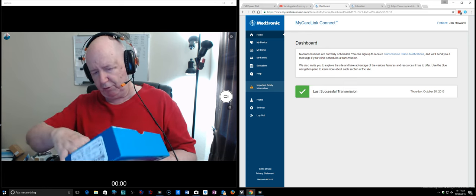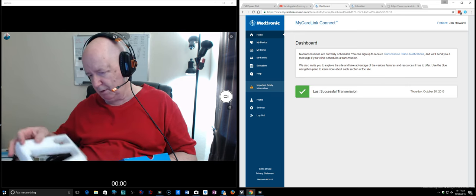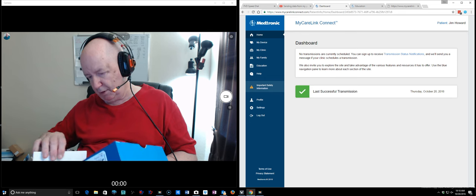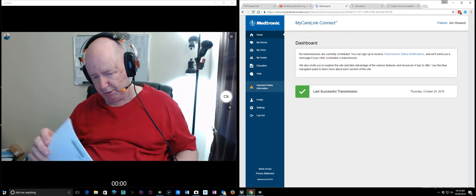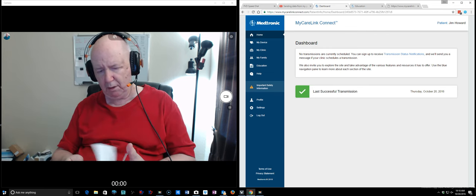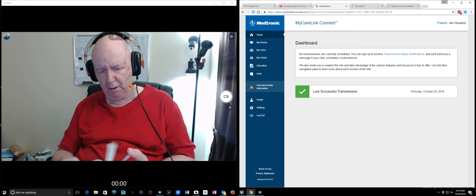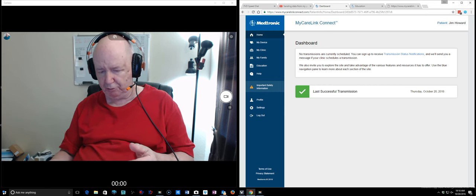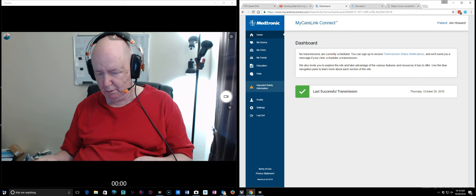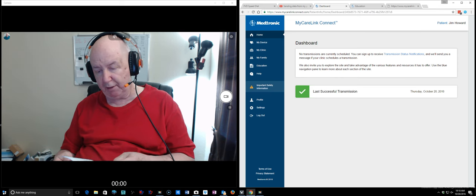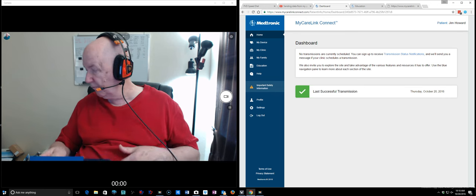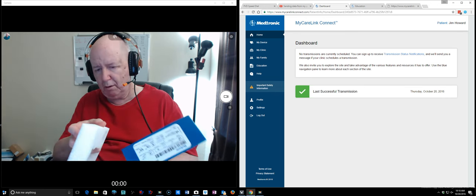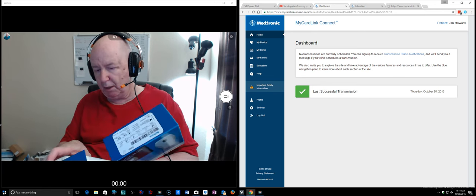So, let's see what else is in the bottom of this box. Patient reader, something in Spanish I think, or French. I think that's Spanish. Oh it does show you install the batteries. No, it just says that the battery compartment is not completely closed, doesn't say anything about needing a sledgehammer to get the thing open.